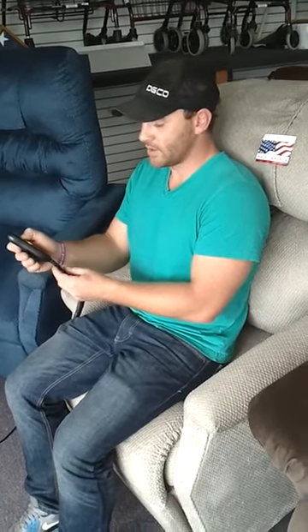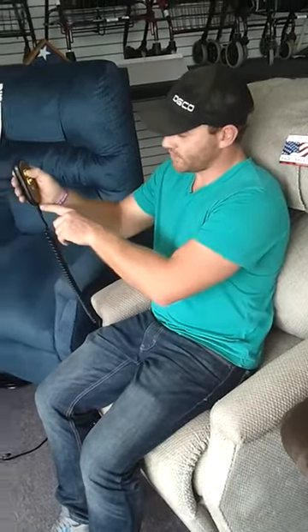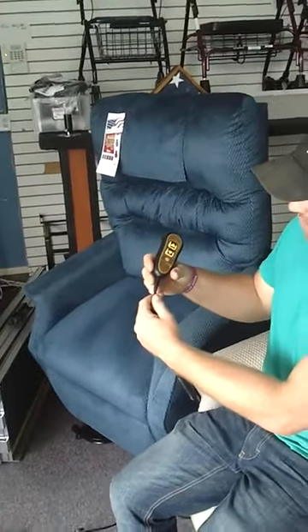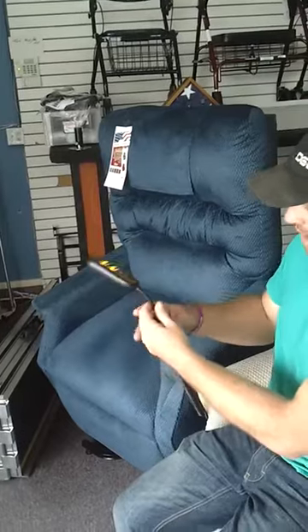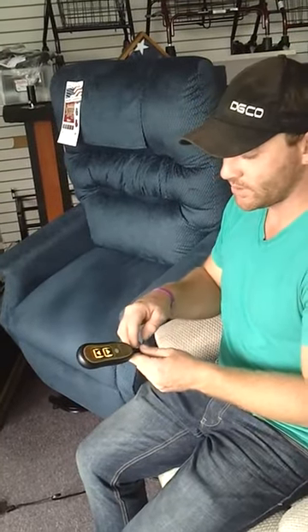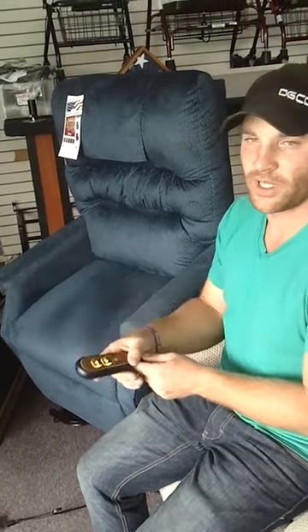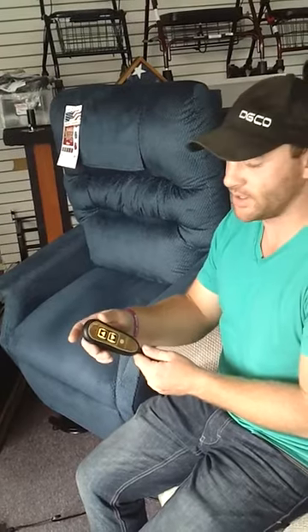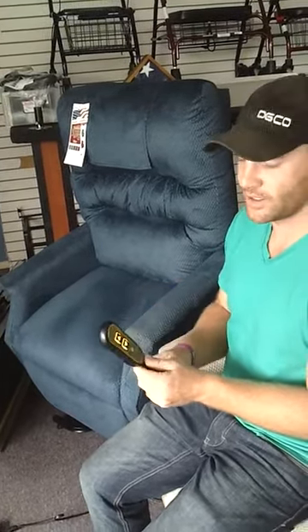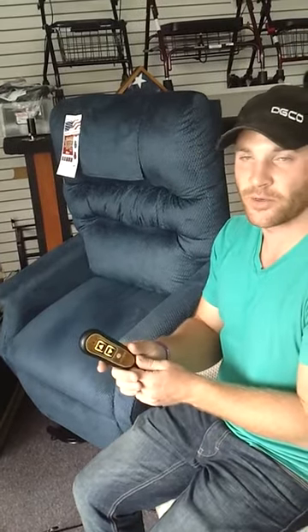The main problems with lift chairs are your controllers. With the Golden Technology controllers, they've rebuilt this part right here because you get a lot of shorts in the controllers from it plopping on the ground. It gets stuck on the side and you're pulling it up, which starts developing shorts in the controller. Plus, when it hits the ground 70 times, it's going to loosen up the toggle switch inside and cause you to break and burn it up.